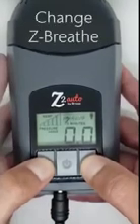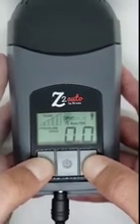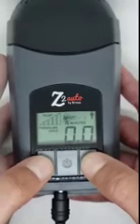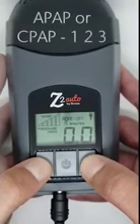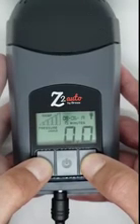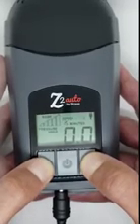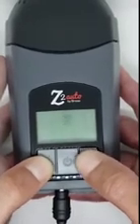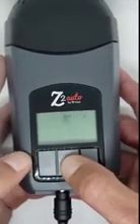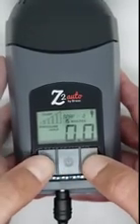Next, we will change the Z-breathe setting. This is a patient comfort setting, with Z-breathe 3 being the easiest to breathe against. To change this setting, press and hold the up and down arrow buttons at the same time until APAP- or CPAP- and a number appears. The numbers go from 1 to 3, and you can now use the up or down arrow buttons to set it to whichever number you need. Once you have it at the correct number, press and hold the power button until it says accept. This will bring you back to the 0.0 screen.